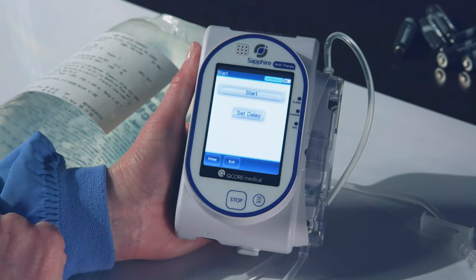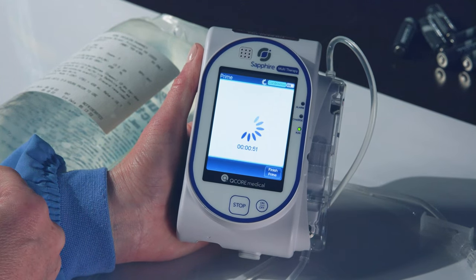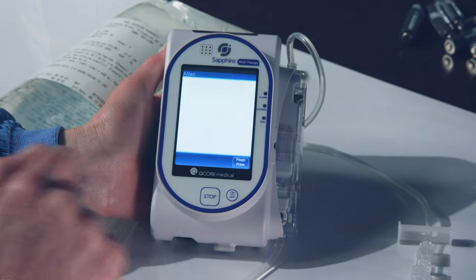If not, once the preset volume is reached, press OK at the completion of the prime. When the tubing is filled with medication, priming is now complete. If not, you will need to press Prime again and repeat the process until the tubing is fully primed.